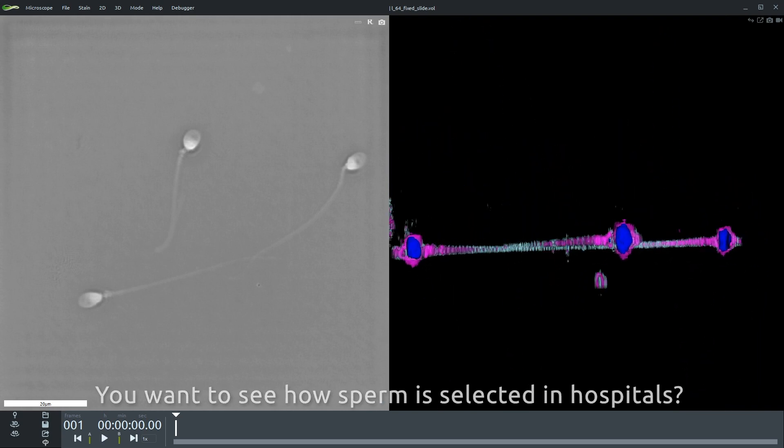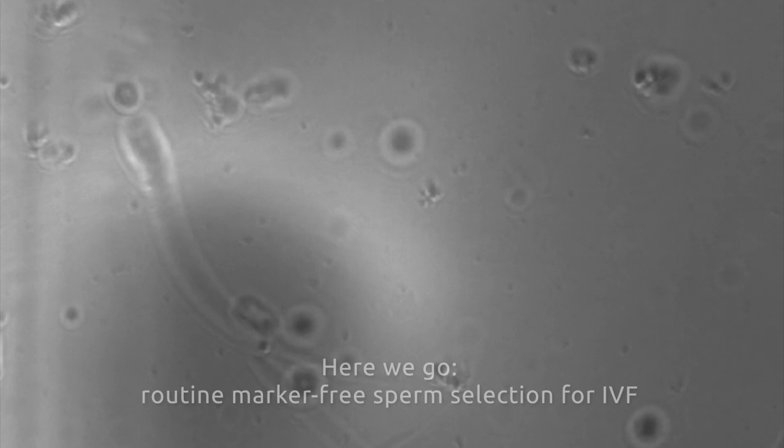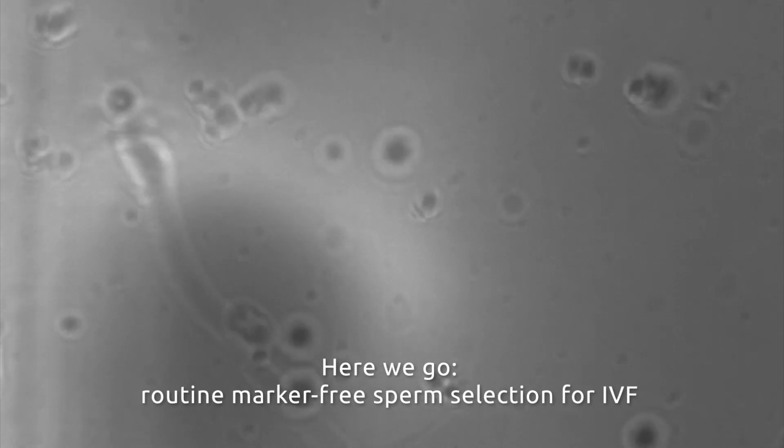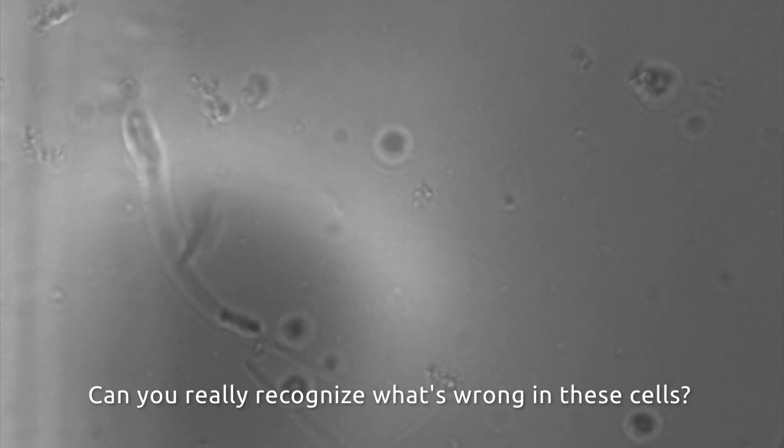But how does a sperm cell look under one of these microscopes? Can you really recognize what's wrong in these cells?